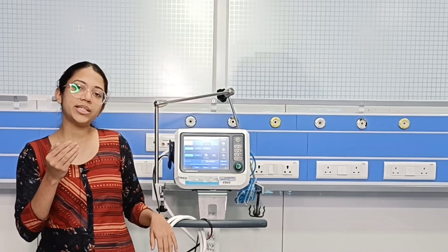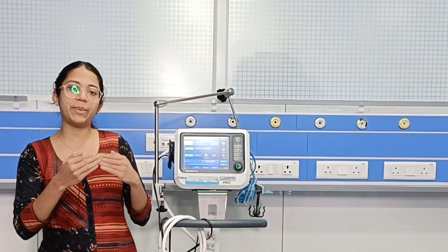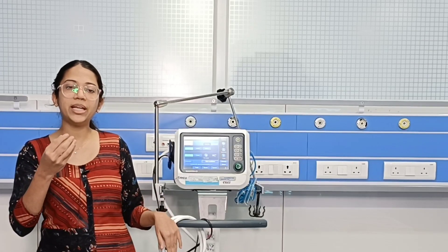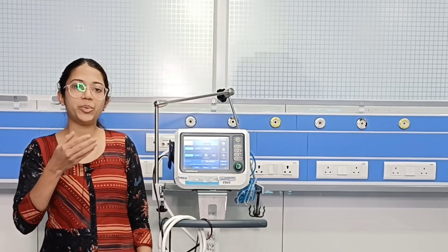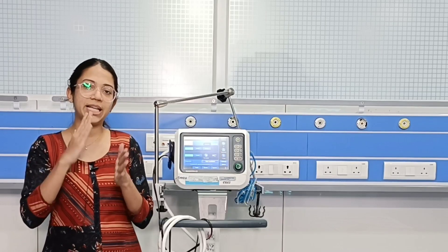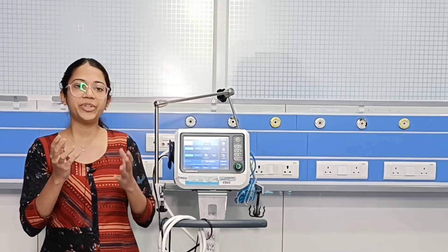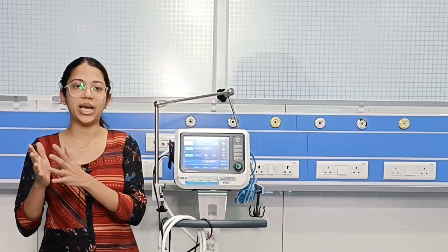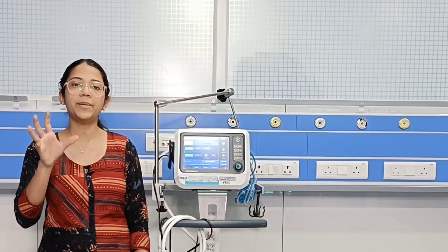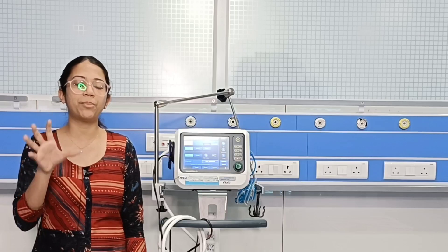For example, if you are keeping the respiratory rate as 10, every six seconds the ventilator will give a breath. In between, if the patient triggers a breath, the ventilator will sense that and support the patient so there will not be any breath stacking or asynchrony. The ventilator will synchronize and the next breath will be given accordingly.